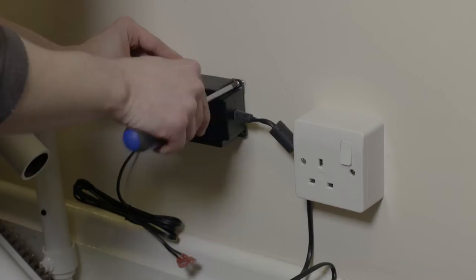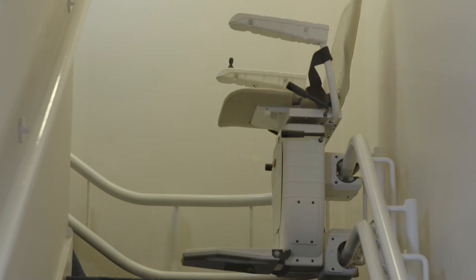By following the steps in this video guide and the Infinity installation manual, you'll be able to quickly and efficiently install a bespoke stairlift to the highest standard and reduce future faults and call-outs.